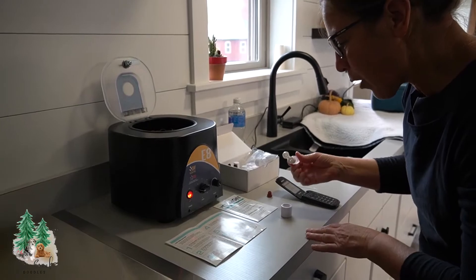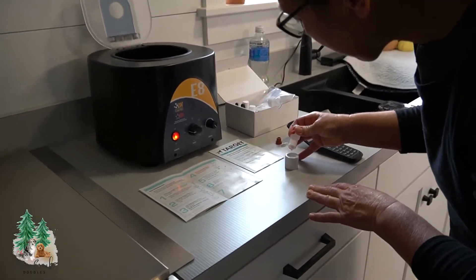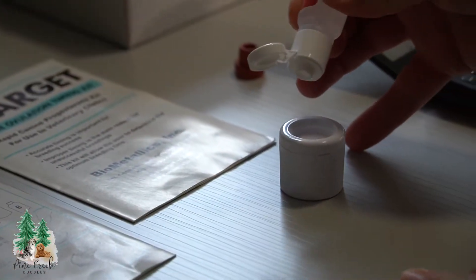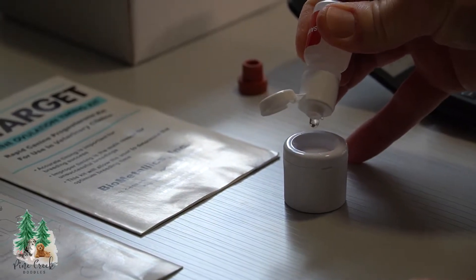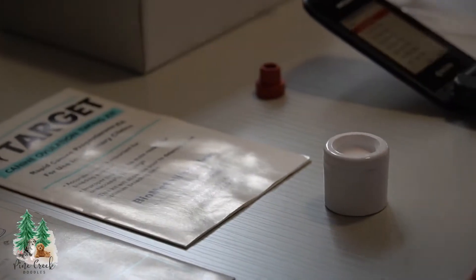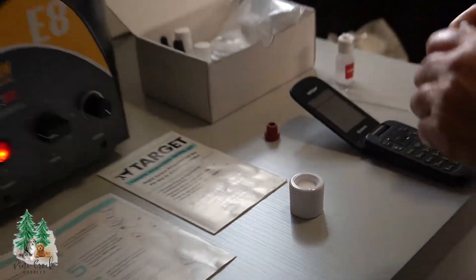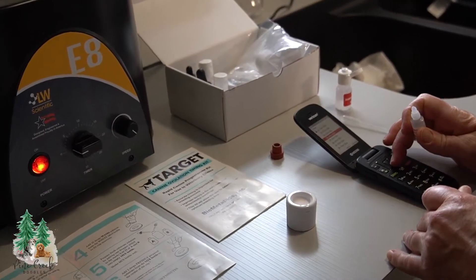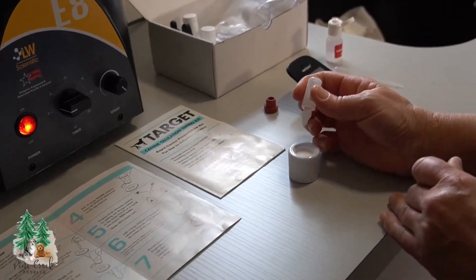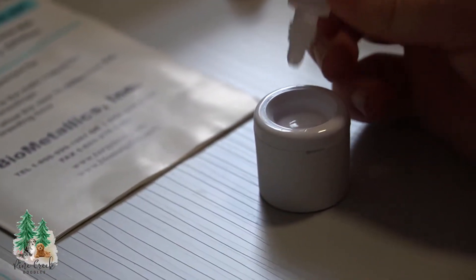And then we will be dropping two drops of this sample wash. One, two, and then two more. Wait until that disappears in there. And then this is an enzyme, which is the most important part of the process to make sure it is timed exactly one minute.